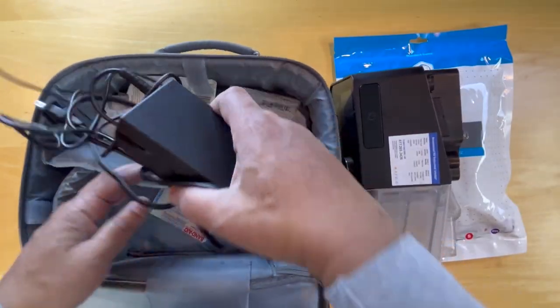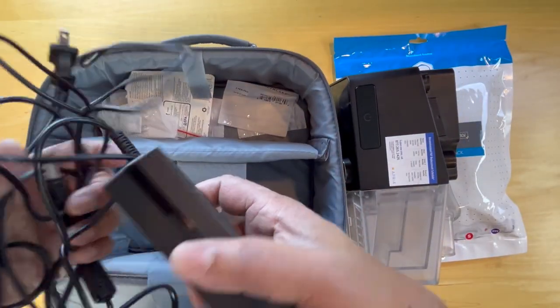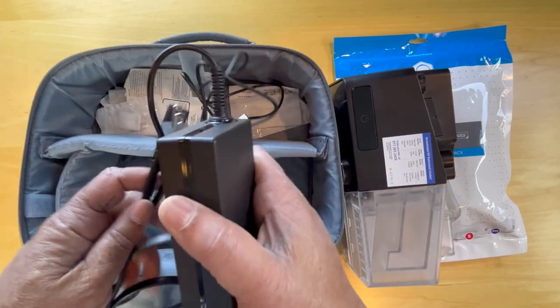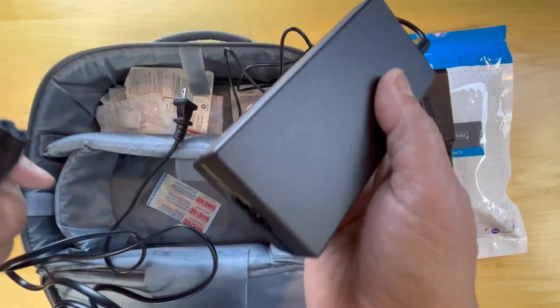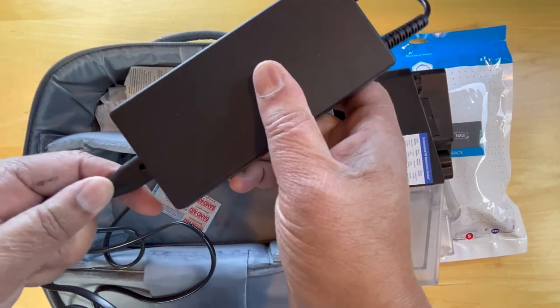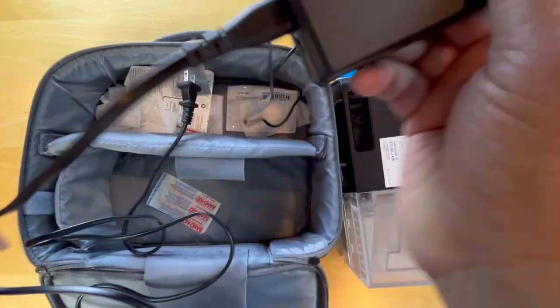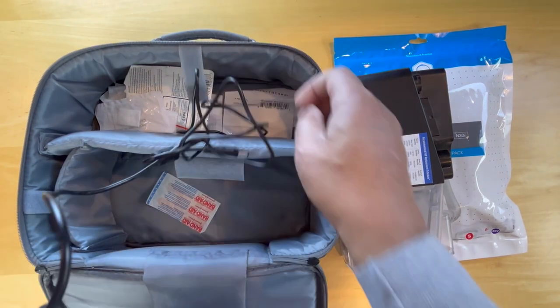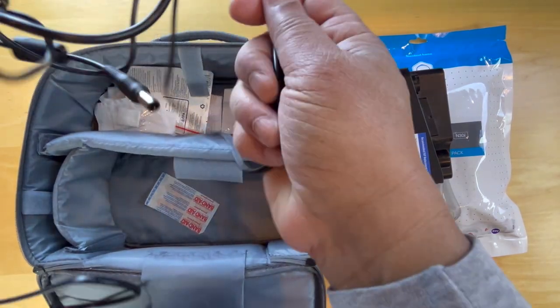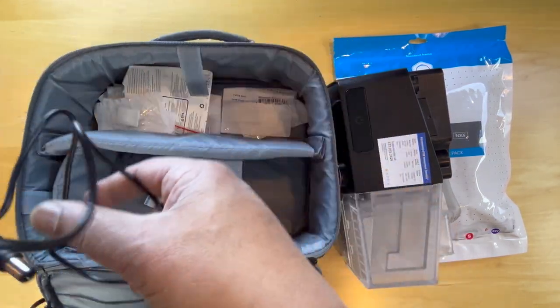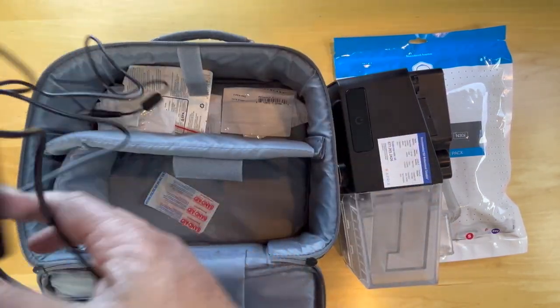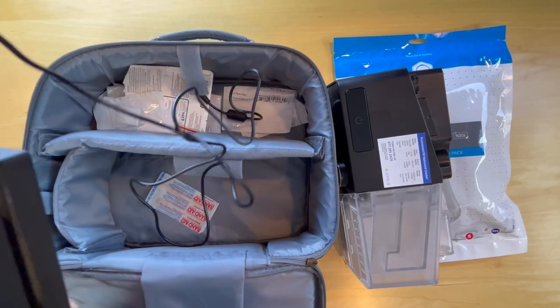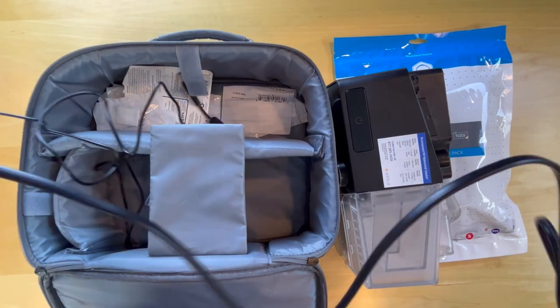It also includes an electrical connection with a piece that goes in here that plugs into the wall, and this plugs into the CPAP. So we'll go ahead and plug this in and be right back.